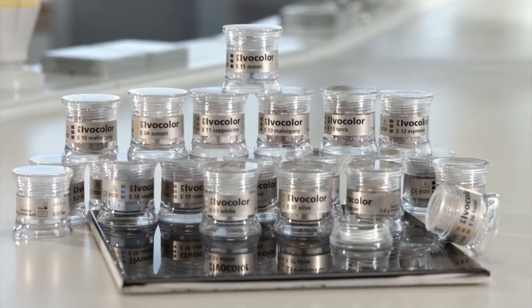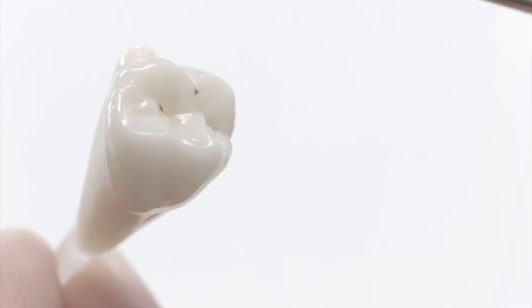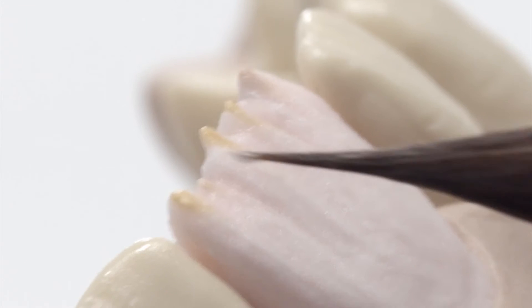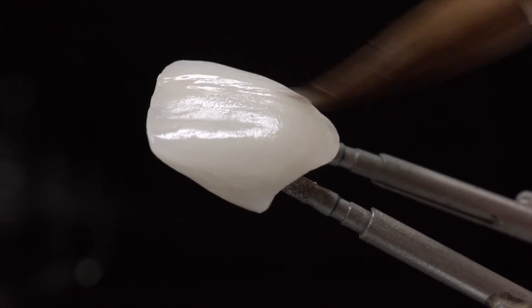But if you're looking for creative control, the essence powders come in 23 varieties. These powder stains add a whole new dimension to characterization. Using small amounts of the powders will yield impressive results. You can mix it with your build-up for subtle effects, and it really adds depth and intensity to the final product.